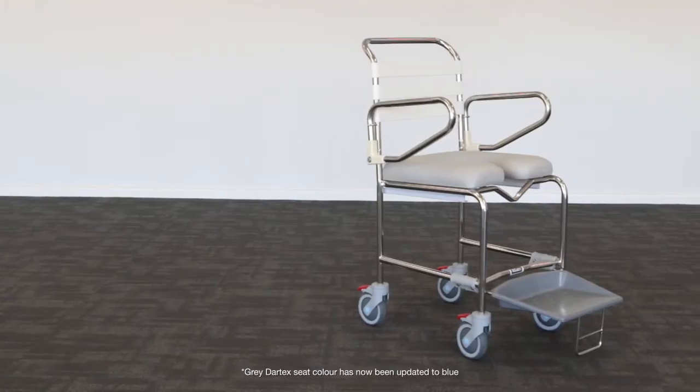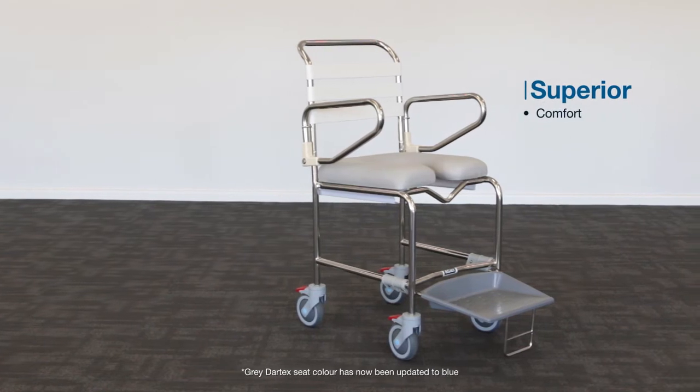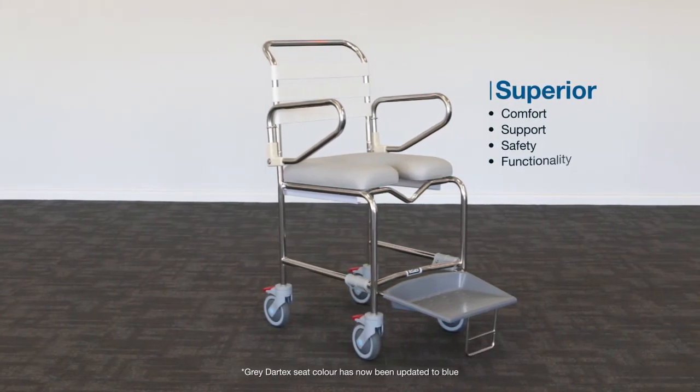The mobile shower commode range from Kcare delivers superior comfort, support, safety and functionality.